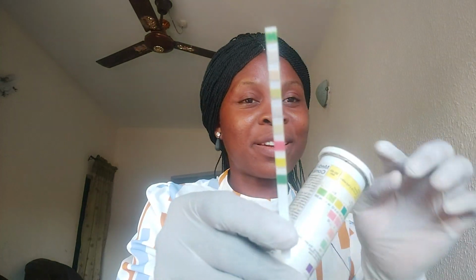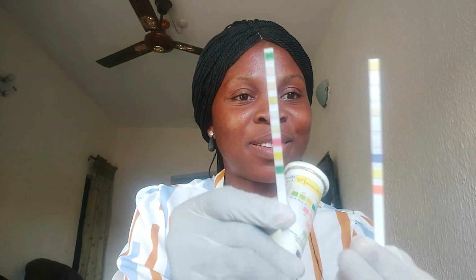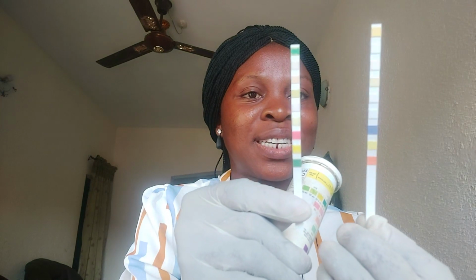Cover the urine and set it aside. Use your gauze to drain excess urine. This container is what we'll still use to read our results. After dipping the urine, look at the changes. I don't know if you are seeing the reaction already. Let me bring the new one out so that you see how the strip looks when it has not been dipped. This is the one I've not dipped. Look at the one I've dipped.